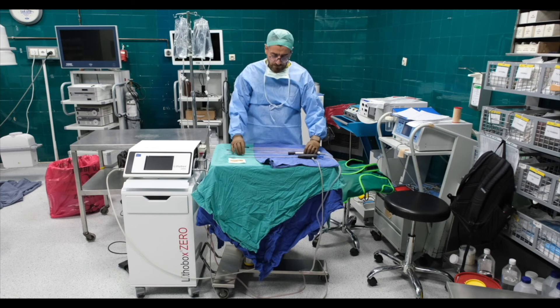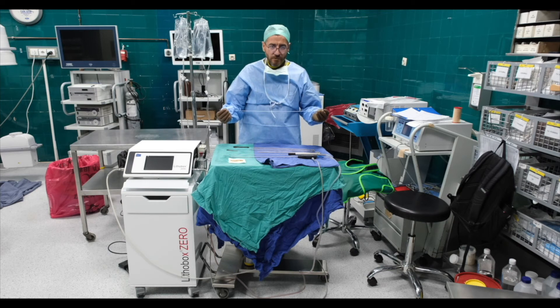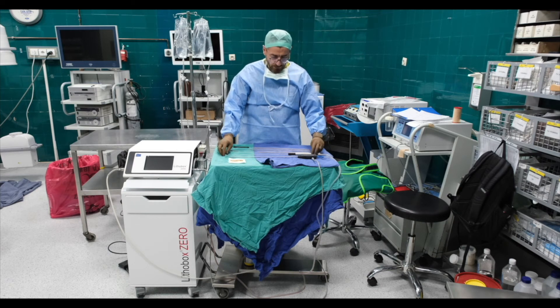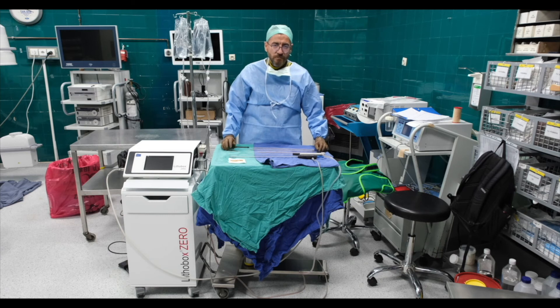You also have various sizes of ballistic lithotripsy probes with various lengths. You can use them with semi-rigid ureteroscopes as well. For PCNL we have probes of 3mm and also 1.5mm and 2mm probes. You can use them with various sizes of nephroscopes with respect to the working channels of the devices.